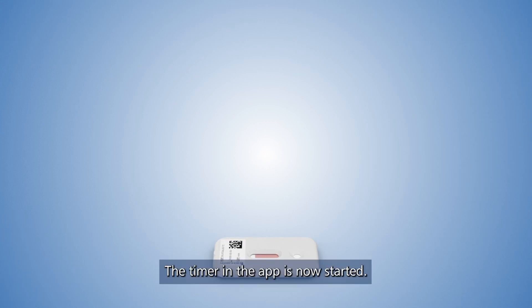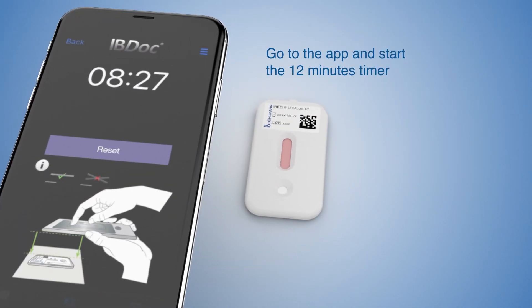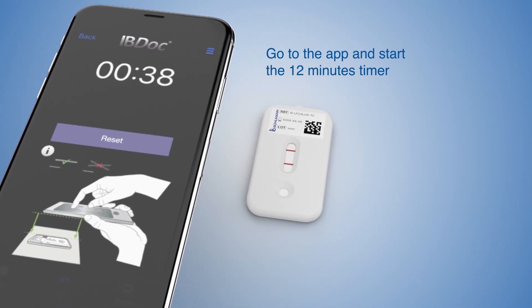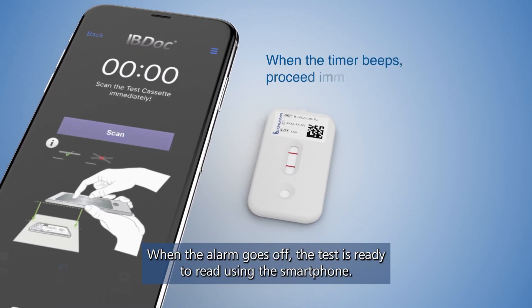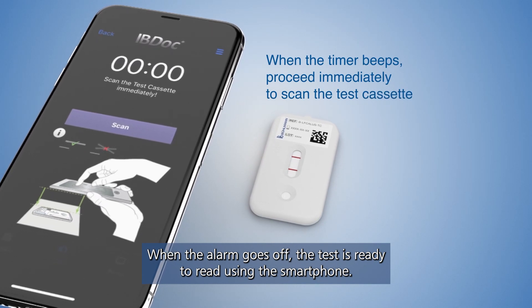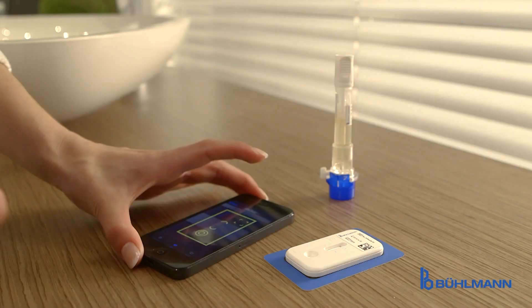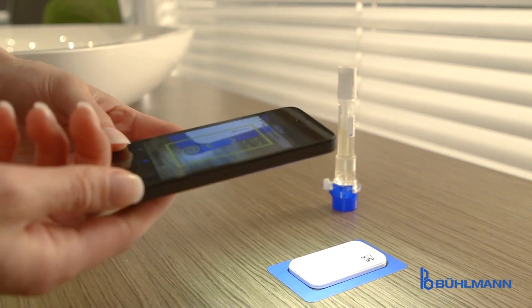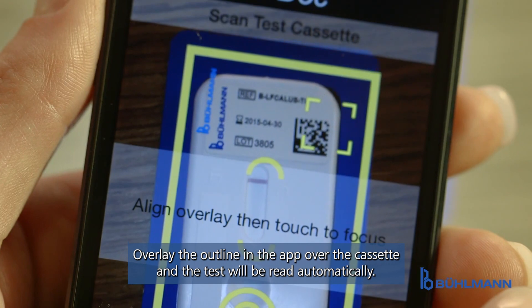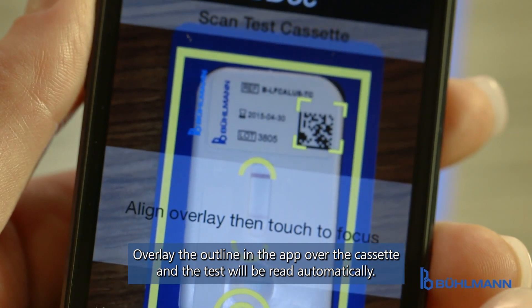The timer in the app is now started. When the alarm goes off, the test is ready to read using the smartphone. Overlay the outline in the app over the cassette and the test will be read automatically.